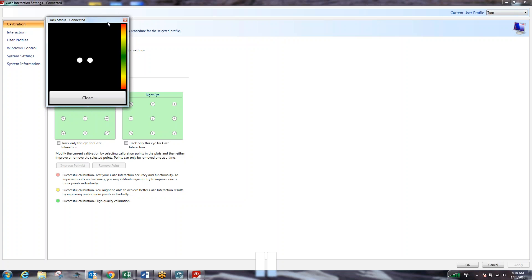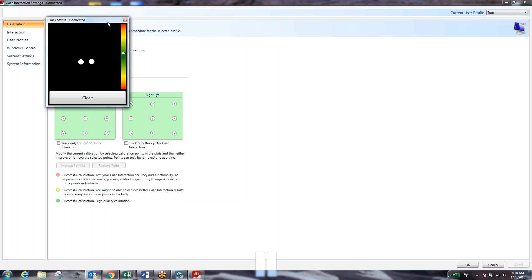That's approximately where I am with my computer now. It's a good reference point for you to start with. So it is able to be tweaked. You are able to move things around. I have had many clients have access with being higher in the box or being lower in the box. It's all a personal situation, but this is really where we want to get started and is a very good starting point. So once we have our track status box centered and in the green, we can close that.